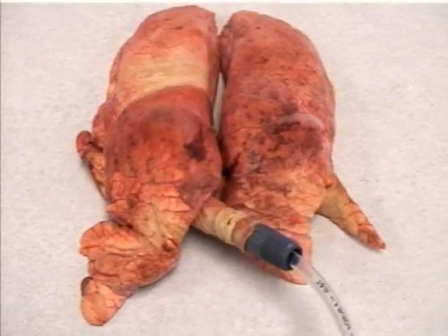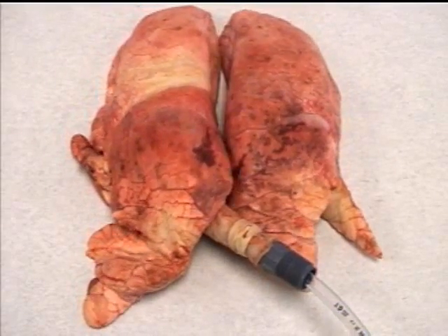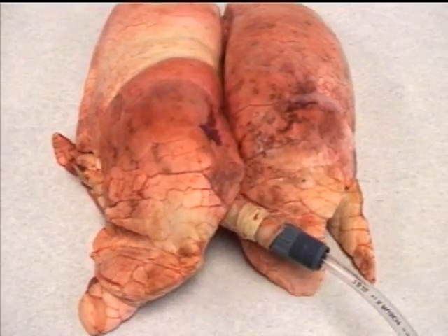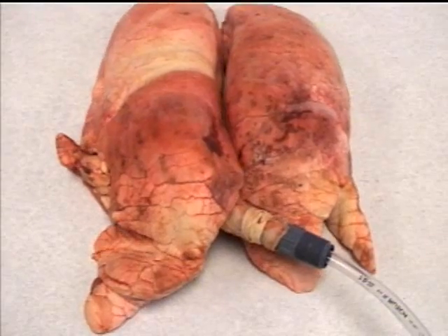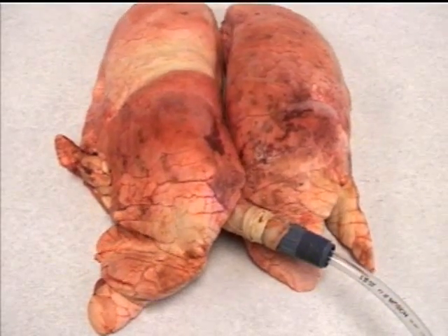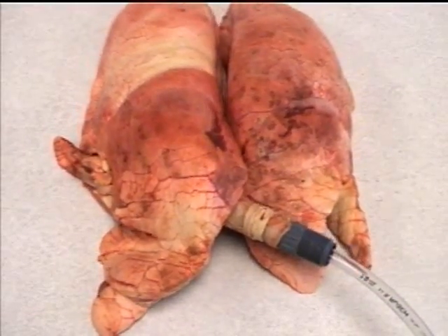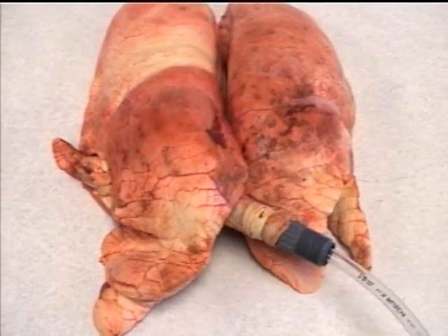That is a pulsatile flow rate of 40 on the proximal airway pressure monitor. Right now we have an I-time of 2 seconds and an E-time of 2 seconds. Our convective pressure rise is 40 centimeters, our oscillatory percussive rate is approximately 500, and we don't have any CPAP — either demand or oscillatory — dialed in.